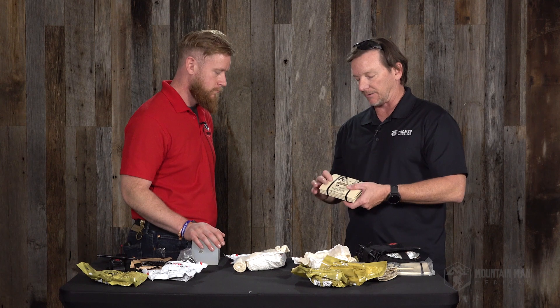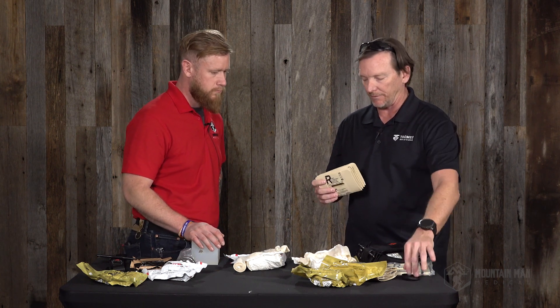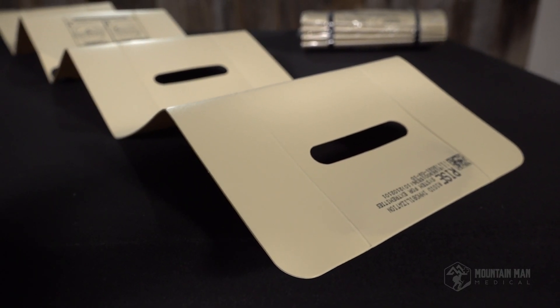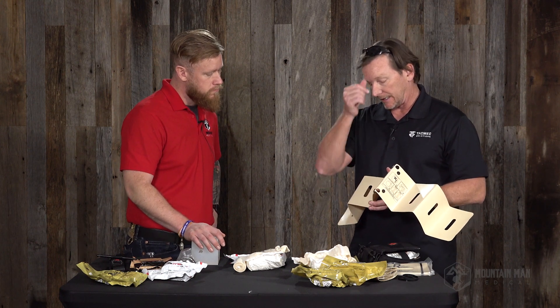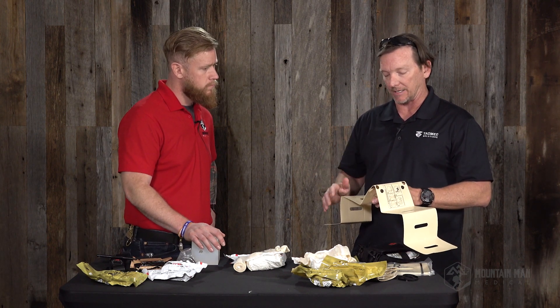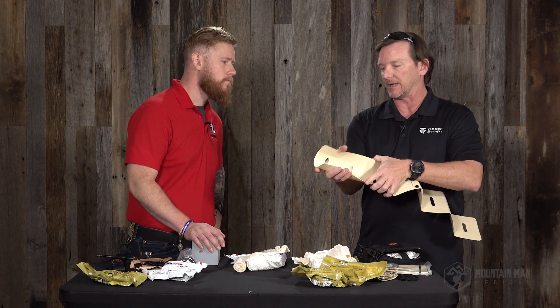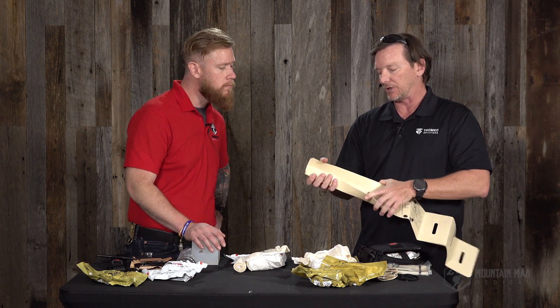The Rise comes with the same two great rubber bands that are wrapped around our tourniquet. When you unfold the Rise, what you get is an accordion or Z-folded platform. The Rise is designed with living hinges — there are scores in the material and it's high density polyethylene, so you can clean it, disinfect it, and reuse the splint. It's really good for that, as opposed to some other ones where once you fold them up you may never get them flat again. This one kind of bounces back, and if you're familiar with drag sleds on the market, they get their rigidity from folding and getting a curve — the Rise is no different. Once you get that fold along those living hinges, that's where you get the rigidity.